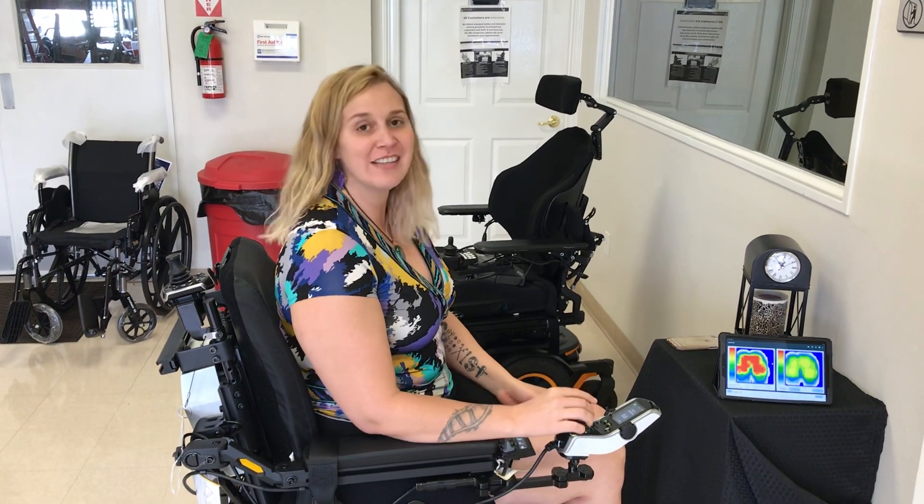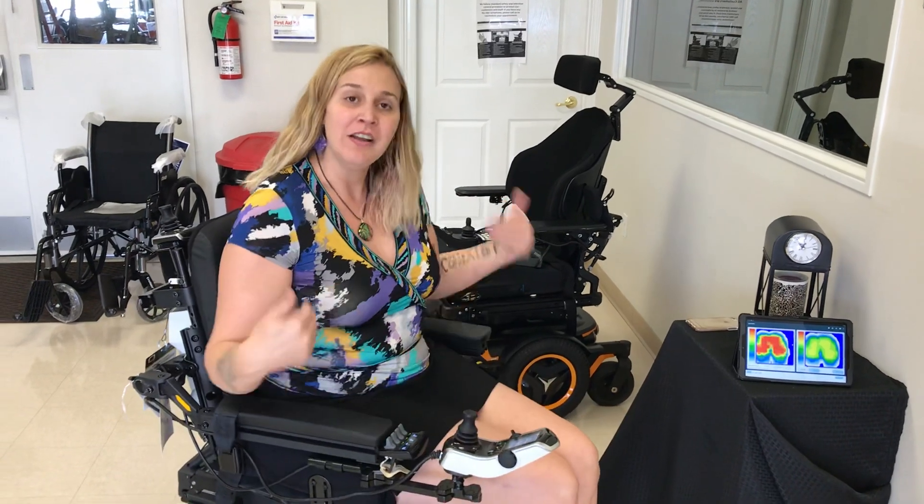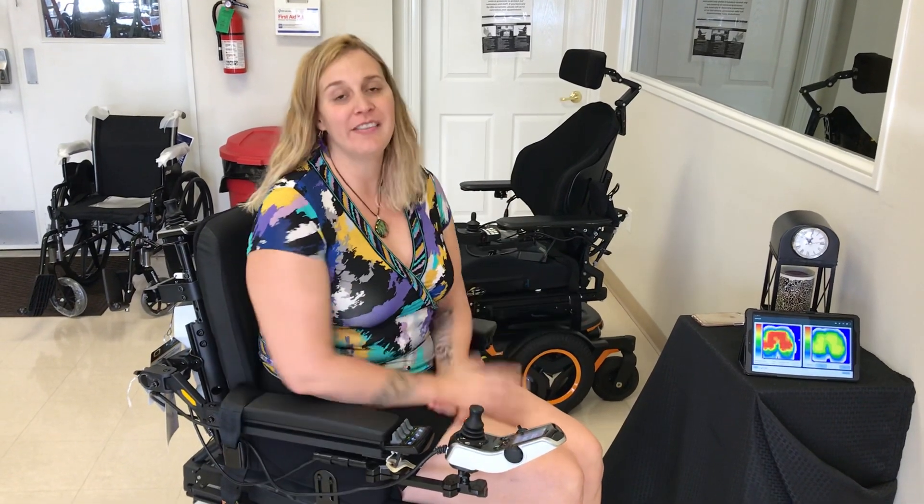Hello, this is Joy, your assistive technology professional, and today we are going to talk about a couple features of power wheelchair, and that is tilt and recline.